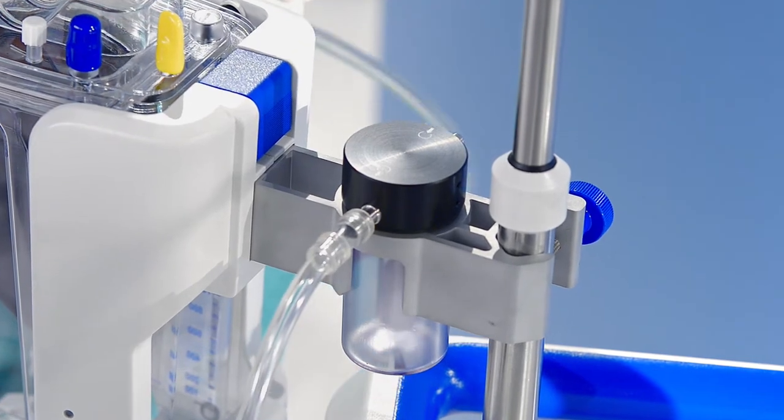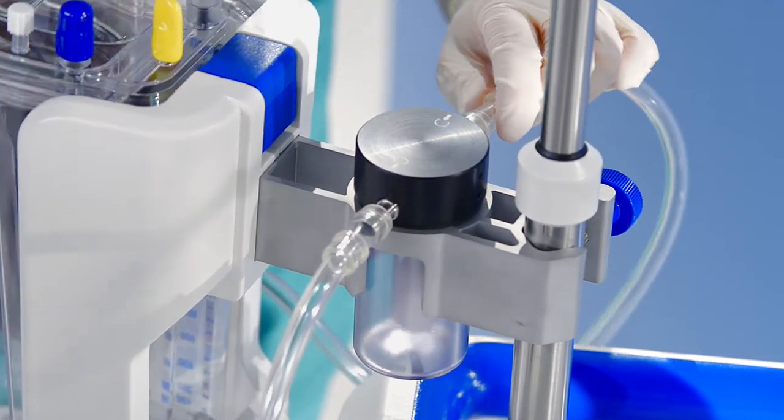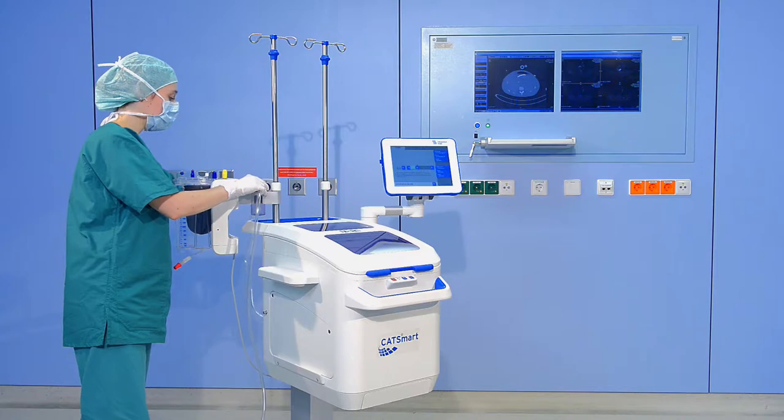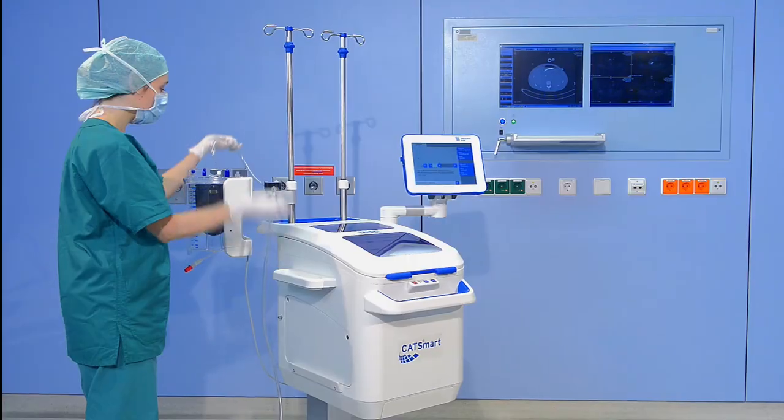Finally, the overfill protector can be connected to the ATR reservoir yellow cap via the ATV vacuum line 70.